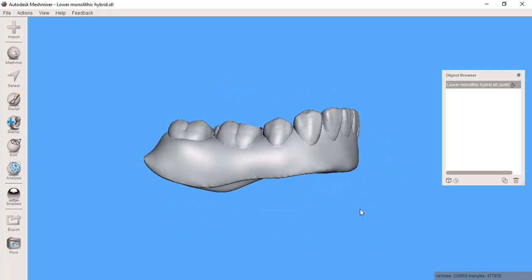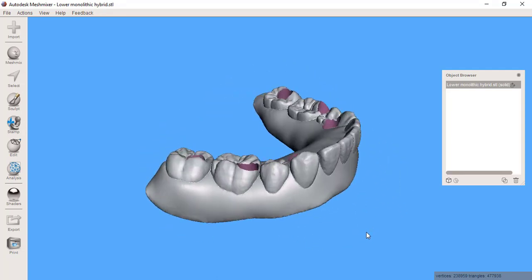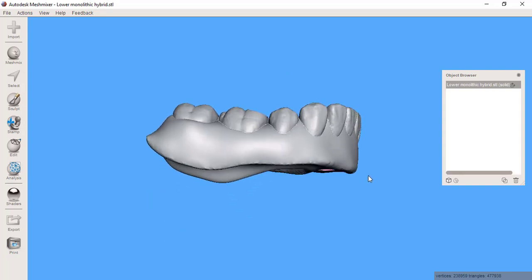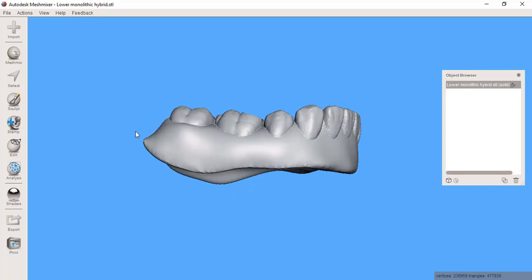We all love the affordability of being able to print prosthetics, however their downfall is that they're pretty weak and we need these things to last throughout the entire process of having that patient temporized.